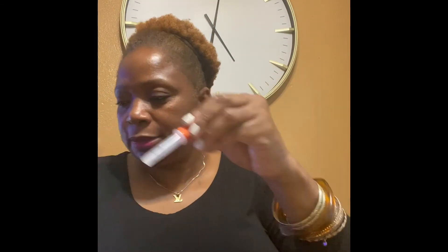You may want to go ahead and close this back up and dispose of it. Then you wait 15 minutes. If you have one line, the C line is the line that is going to be on our test — the C is going to be filled in, you will have a line below the C. Now if you have a line underneath the T, that means you're positive. I'll show you guys once I finish taking this test. All the instructions are in here. So I wait 15 minutes and I'll let you know what happens.